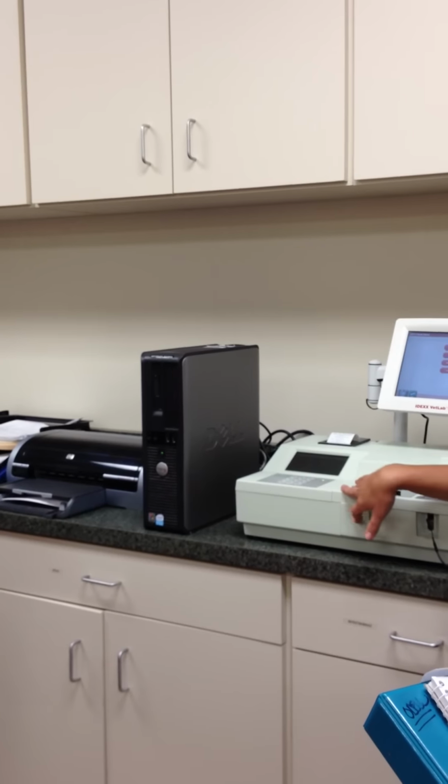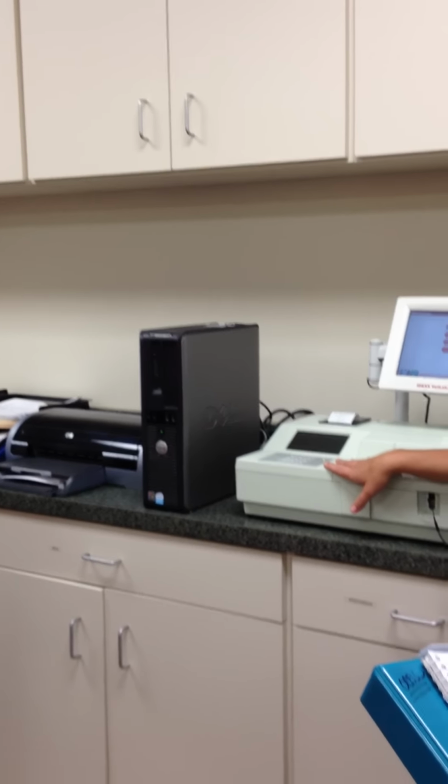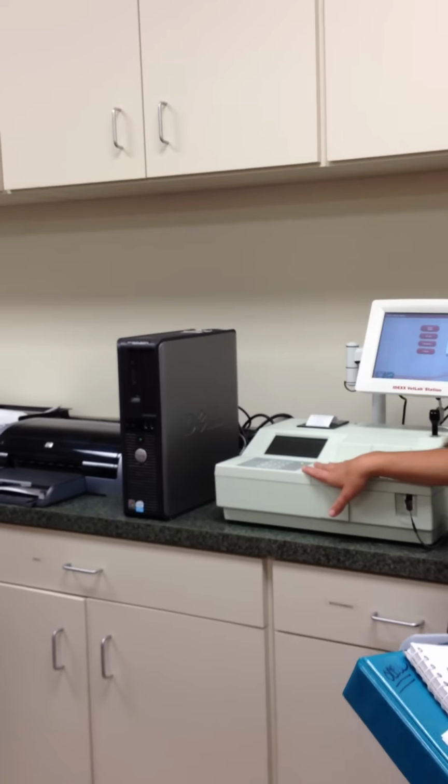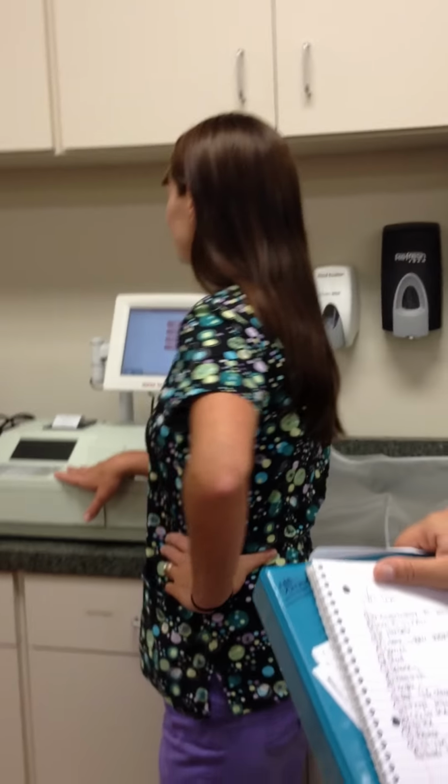And the nice thing about this machine is it is idiot-proof. You can't screw it up. You shouldn't be able to. Accepted. Let me correct myself. You shouldn't be able to screw it up. Challenge accepted. Okay? Got this.